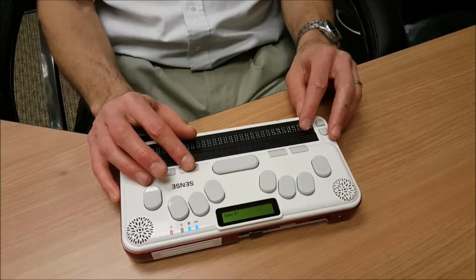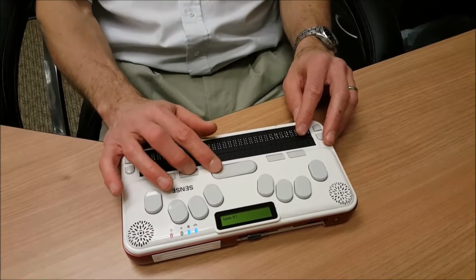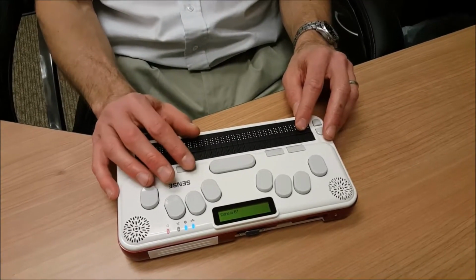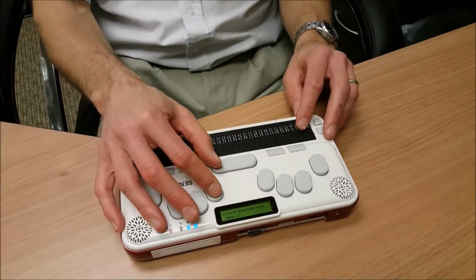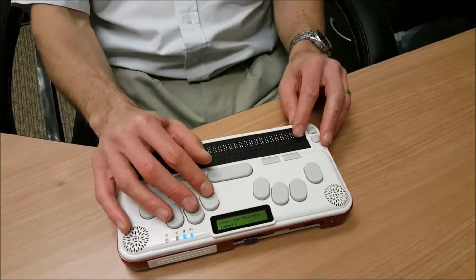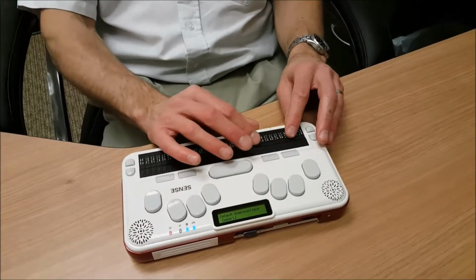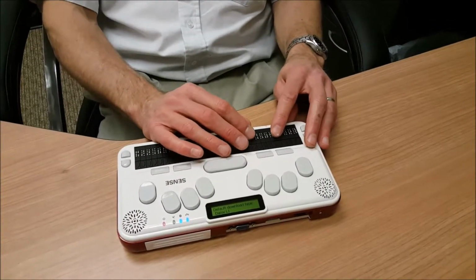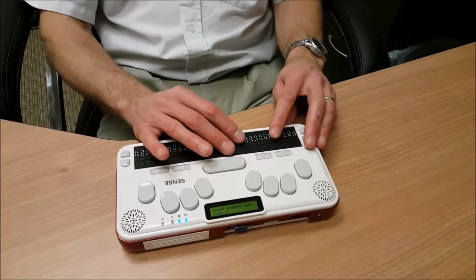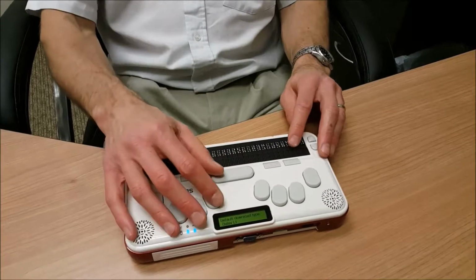I'm going to press tab one more time. Save button. We're going all the way back in editing to where we pressed the space bar to go back around to Daisy for the default download type.